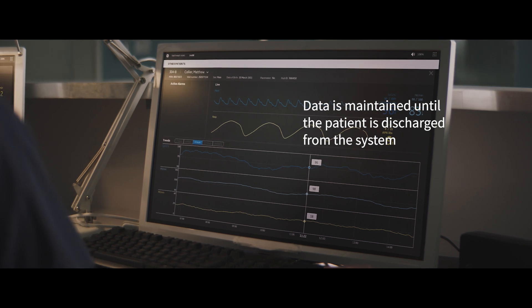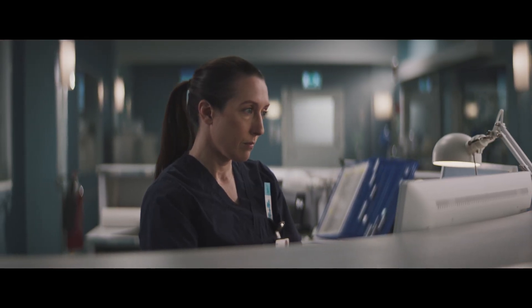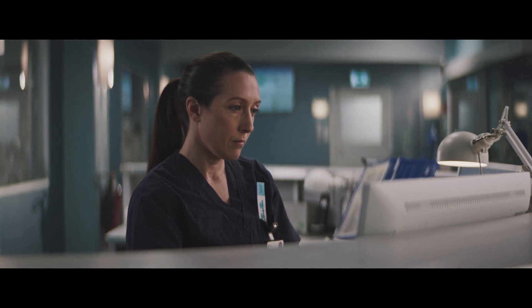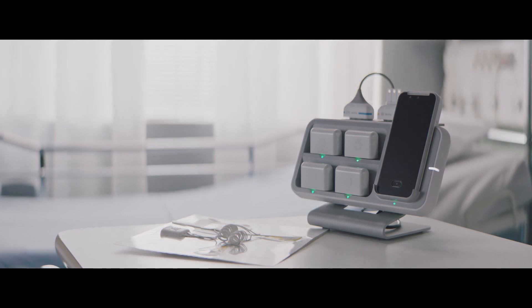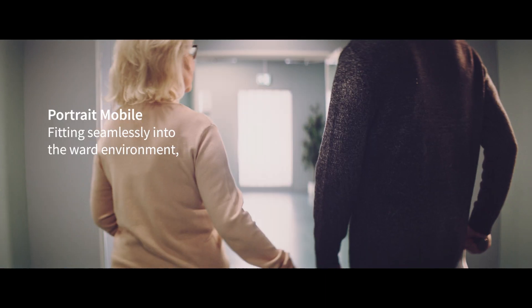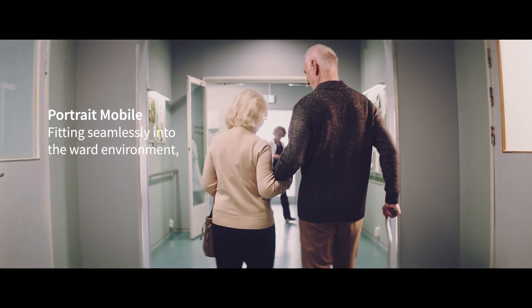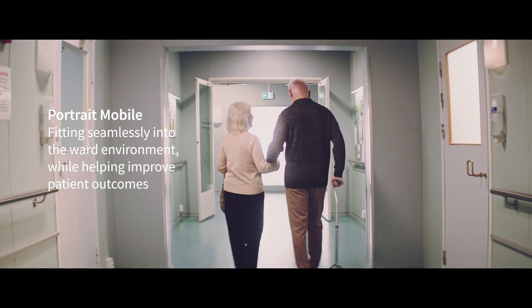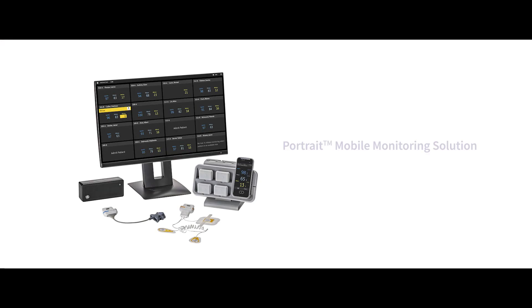With simple and intuitive workflows, Portrait Mobile makes it easy to add continuous monitoring to help provide advanced patient care. For early detection of patient deterioration in the ward, Portrait Mobile is a continuous, wearable, wireless monitoring solution that fits seamlessly into the ward environment while helping improve patient outcomes. Where patients go, Portrait Mobile follows.